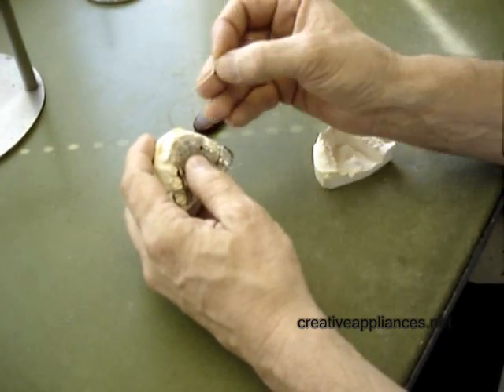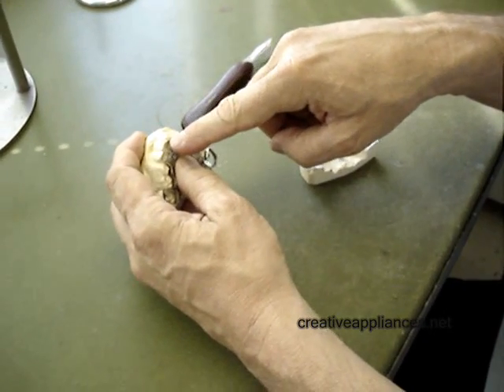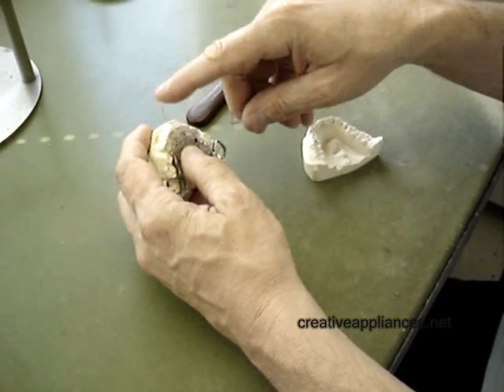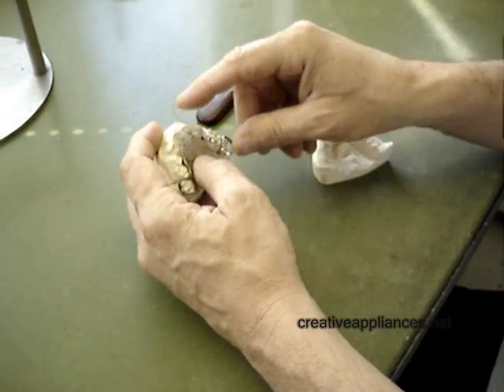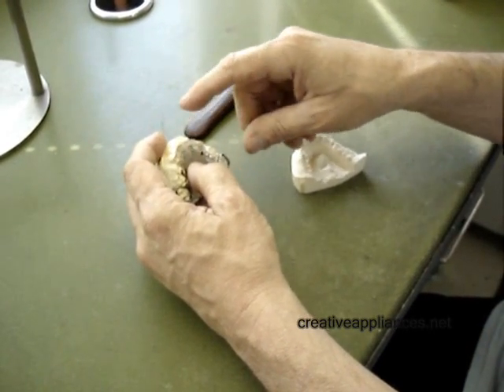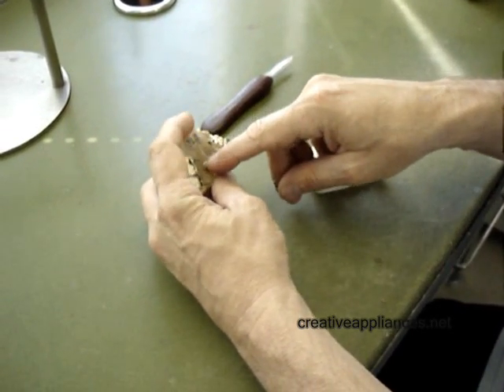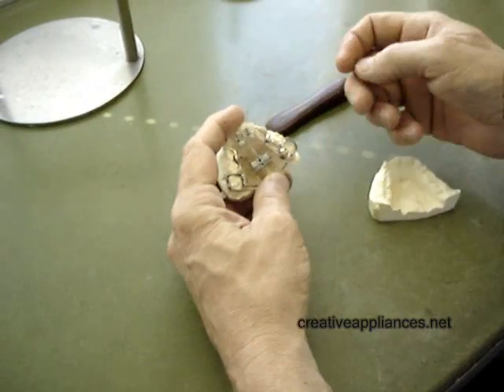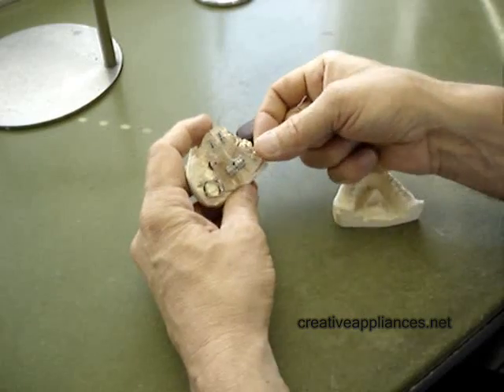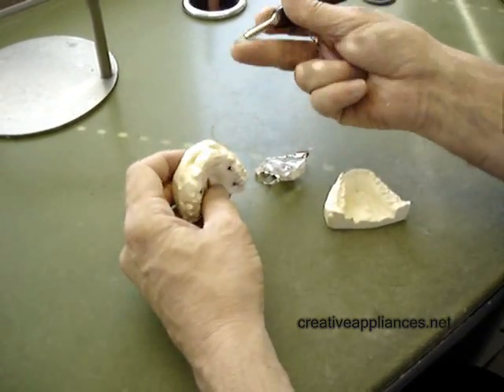So we've added two micro screws, one on each of the centrals, for anterior expansion in that direction. They will not be activated at the same time — the anterior teeth will be pushed forward first, and once they've reached position, the screw at the midline will then be activated, and the arch will be rounded out to accommodate the teeth that are sub-gingival and have yet to emerge.